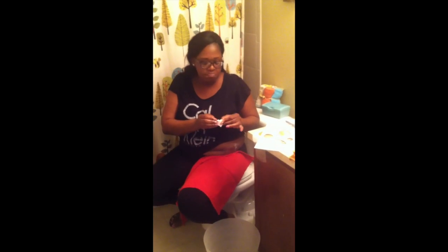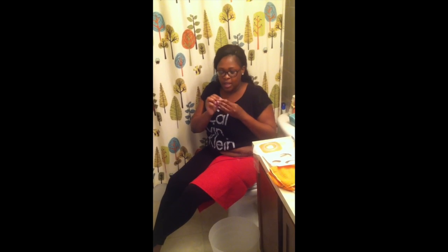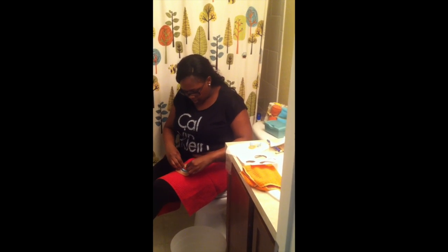There's no discomfort during this process? No, not at all. What's the next step? In order to get the adhesive to actually stick around my stoma, you have to either use stoma paste or I have this stoma adhesive which works better for me. It comes in a ball, so you just have to kind of play with it — it looks like Play-Doh but it's not. You just take a little piece out of it and roll it up until you get it elongated, then take your adhesive. So you're making a nice seal — yes.